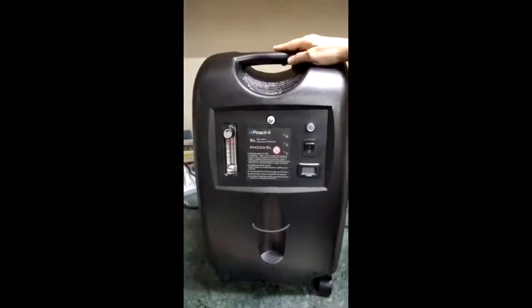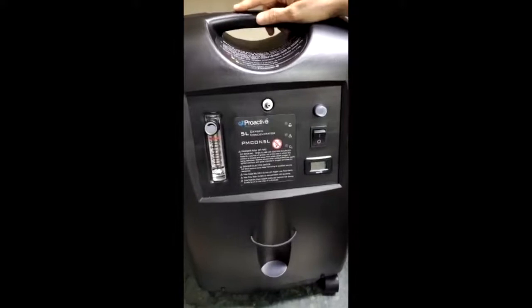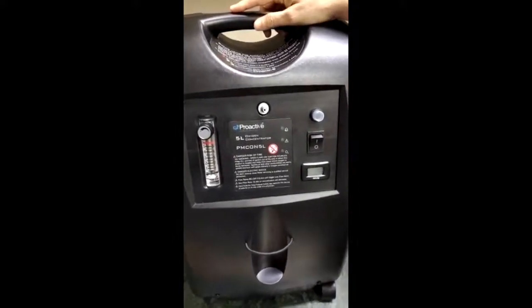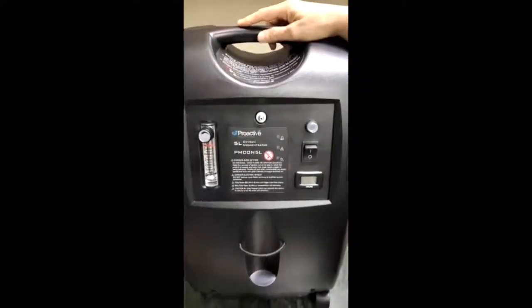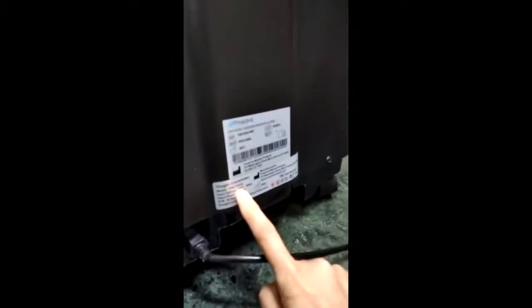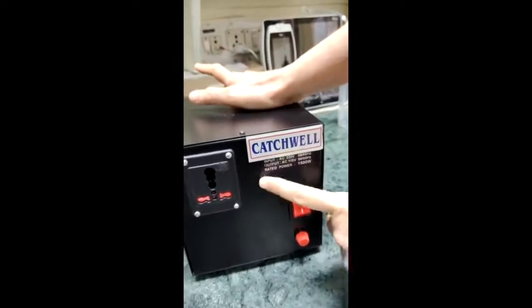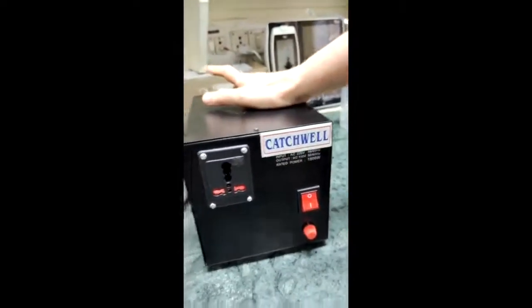This is the proactive oxygen concentrator received from the US on donation. As you know, the common voltage output in the US is 110 to 120 volts. This concentrator requires 120 volts input, whereas in India the voltage output is 220 volts. So before using this concentrator, we need a voltage converter to convert the 220V input from India to 110V output so the concentrator can work.